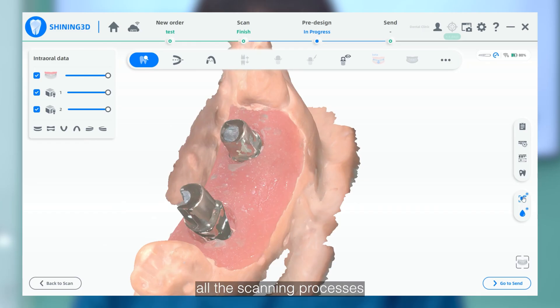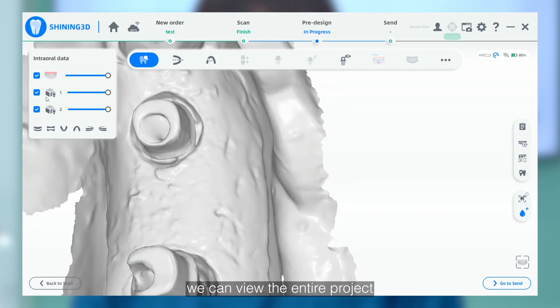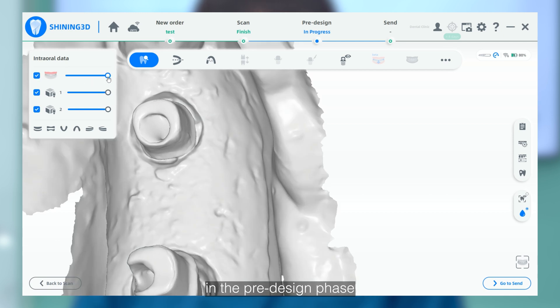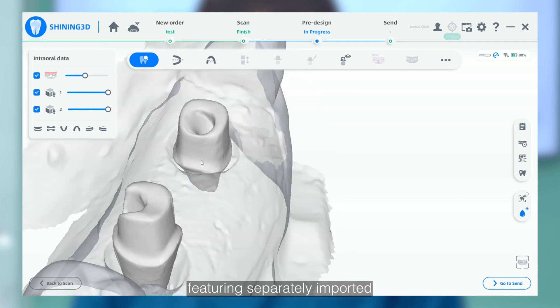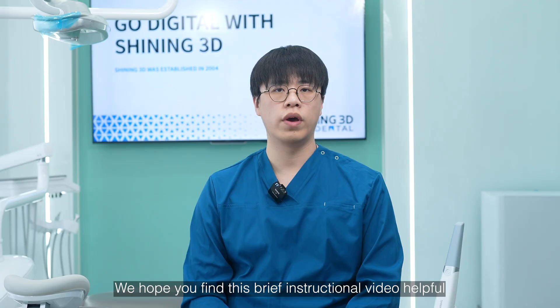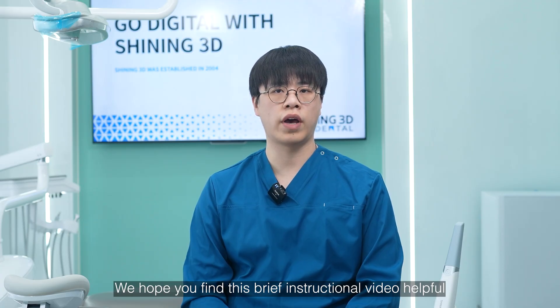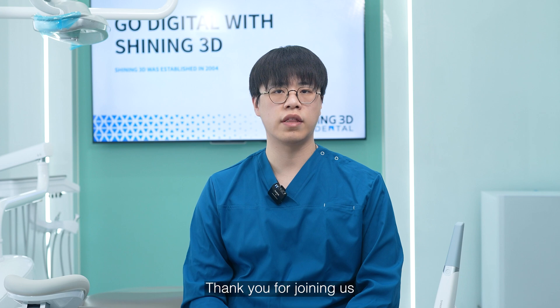After completing all the scanning processes, we can view the entire project in the pre-design phase, featuring separately imported or scanned abutments. We hope you find this brief instructional video helpful. That's all for today. Thank you for joining us.